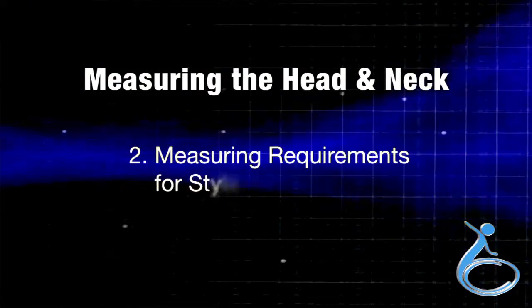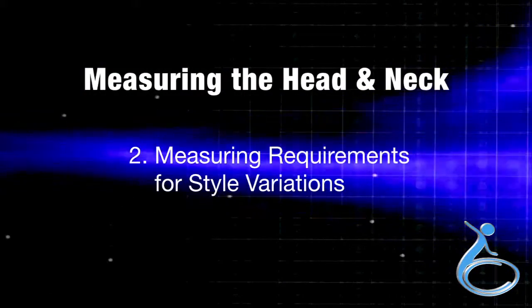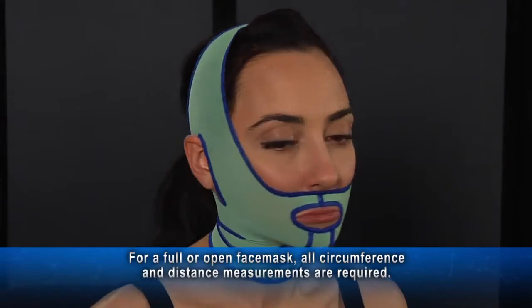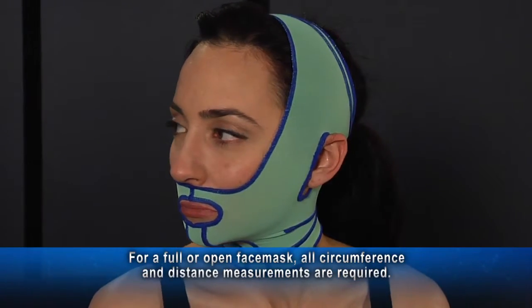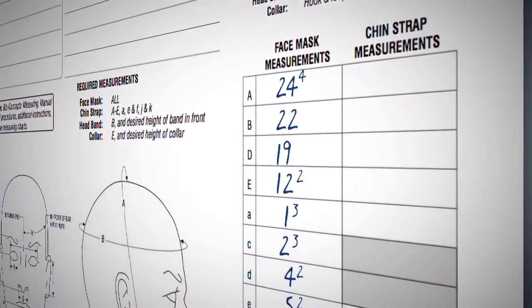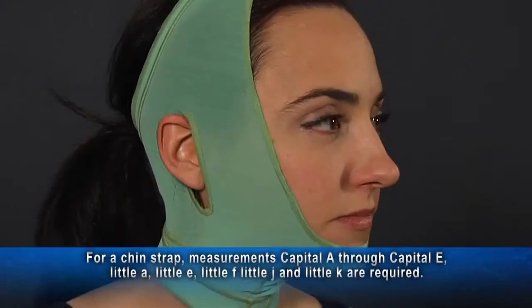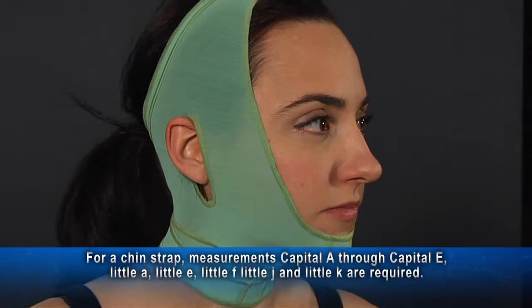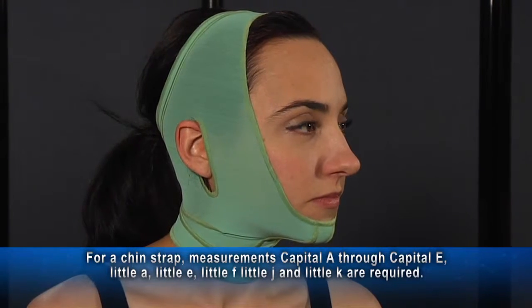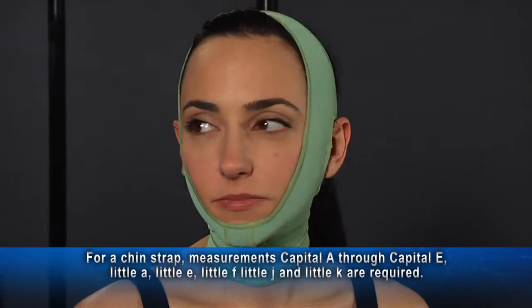Section 2 covers measuring requirements for style variations. For a full or open face mask, all circumference and distance measurements are required. For a chin strap, measurements capital A through capital E, and little a, little e, little f, little j, and little k are required.